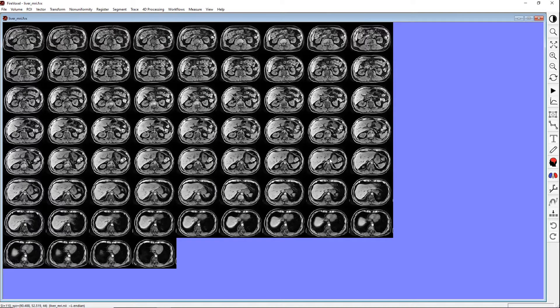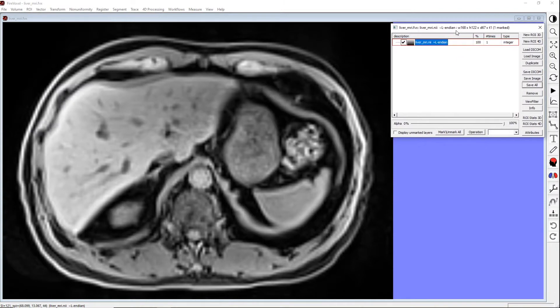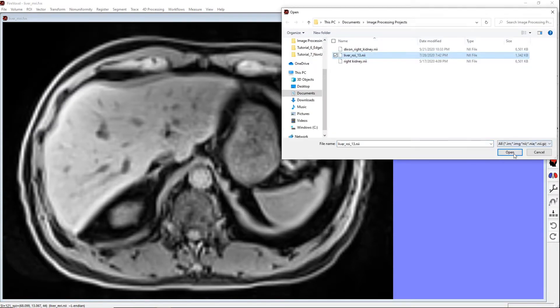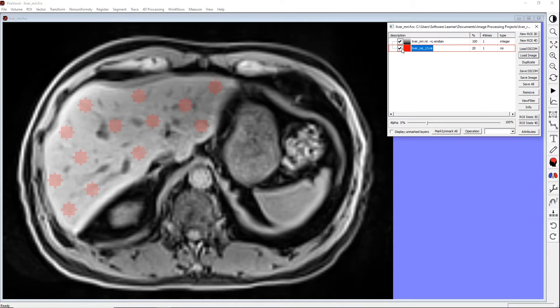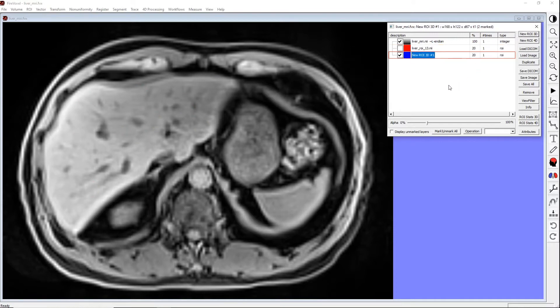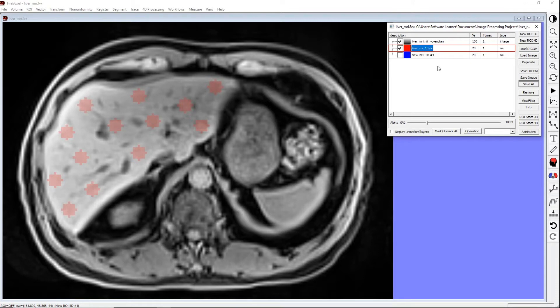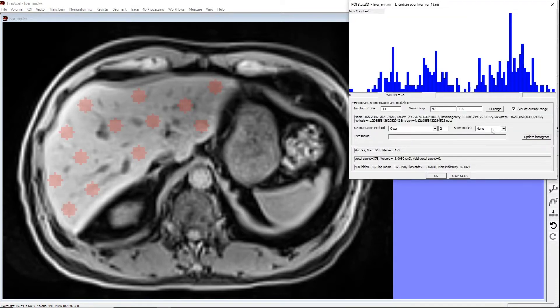Now let's look at how non-uniformity affects the signal distribution. We will do it by examining the image intensity histogram in the liver. Select a slice through the liver. For demonstration purposes, we will load a previously saved ROI with several areas, or blobs, drawn in the liver. To create a similar ROI, you can click New ROI 3D and use the paintbrush tool to draw several blobs in the liver. Now activate your ROI layer and open the ROI statistics panel to examine the signal histogram. For a uniform organ such as the liver, we expect to see a single, relatively compact peak. Instead, this histogram shows a series of peaks in a wide intensity range. To estimate the signal intensity variation across the liver, we will use the blob non-uniformity measure.